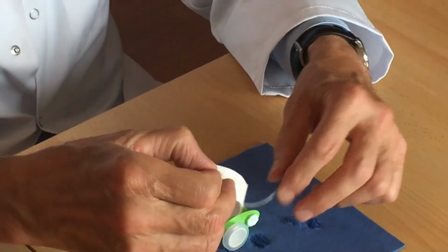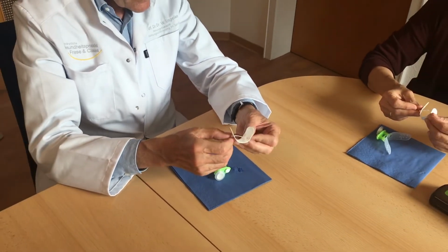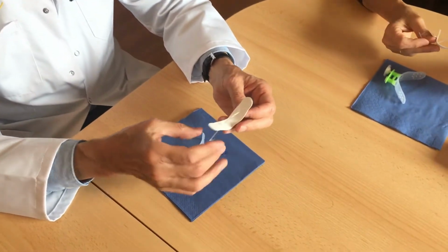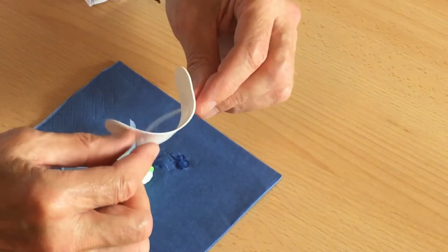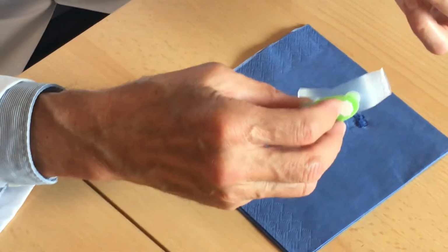So, like the vacuum activator, the Liplock has a membrane which is put in between the lips and the teeth. So it's more of a shield. It's a shield. Okay, so you're right.